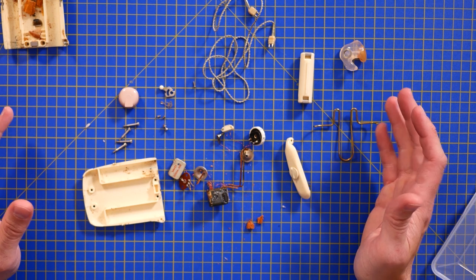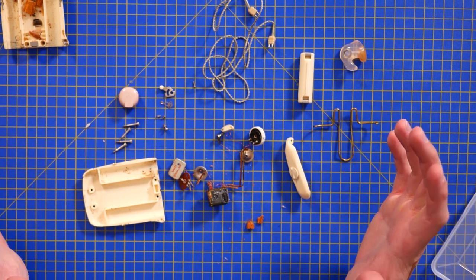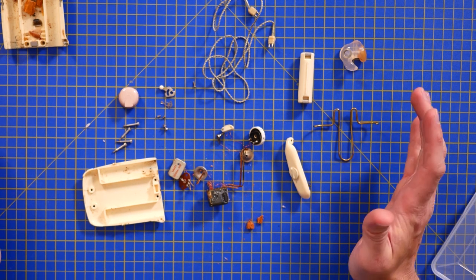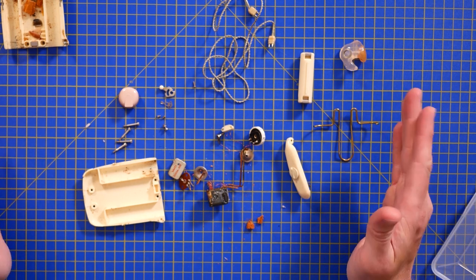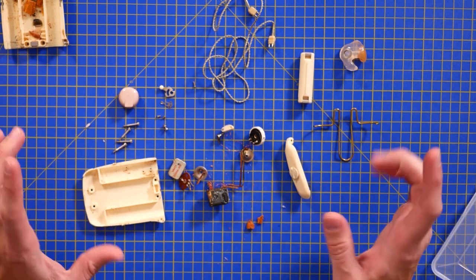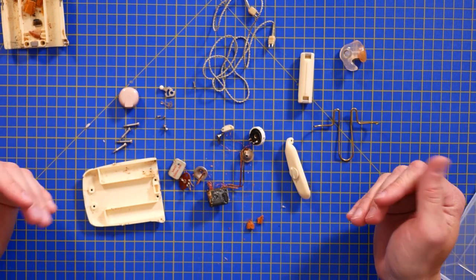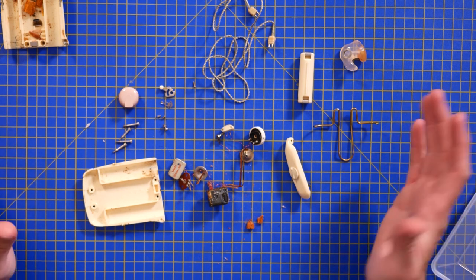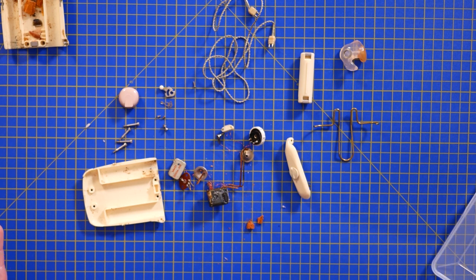Most people could probably knock this up in an afternoon with some very basic electronics knowledge and a few passive components — very easy and very cheap to reproduce. Don't get me wrong, I'm not suggesting you do. This is a medical device you're putting very close to somebody's brain, and I'm not suggesting everybody goes home and starts making their own hearing aids for their loved ones. But electronically, this is a simple circuit — I've built projects with audio amplification and it wouldn't be too challenging to replicate.